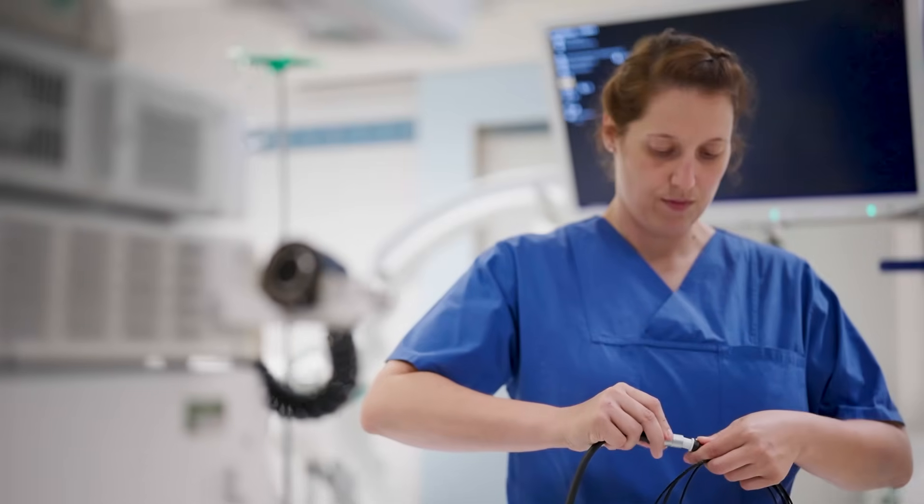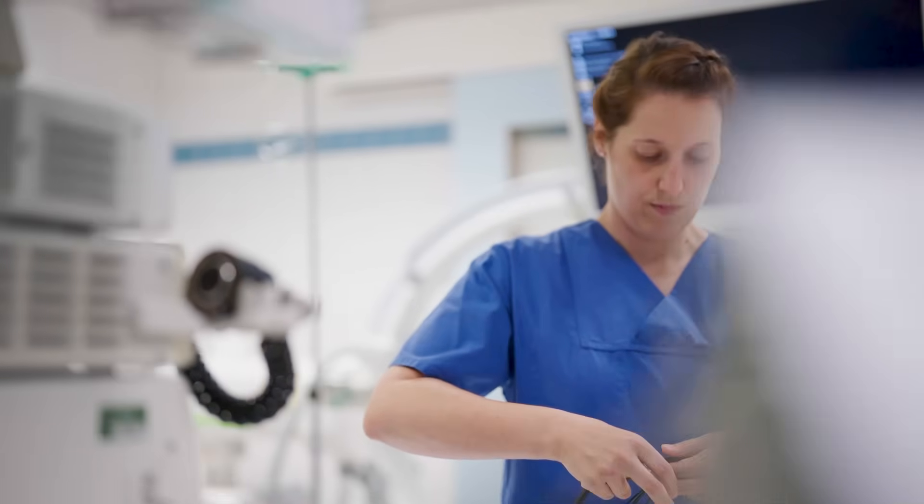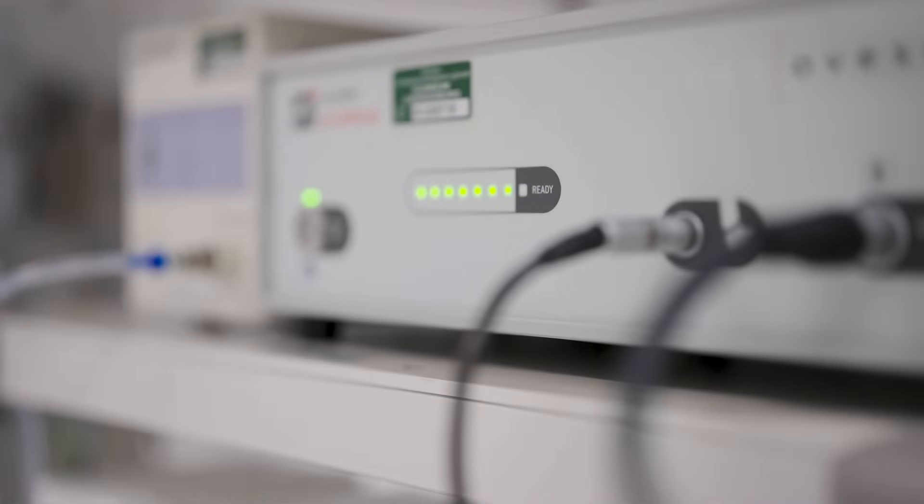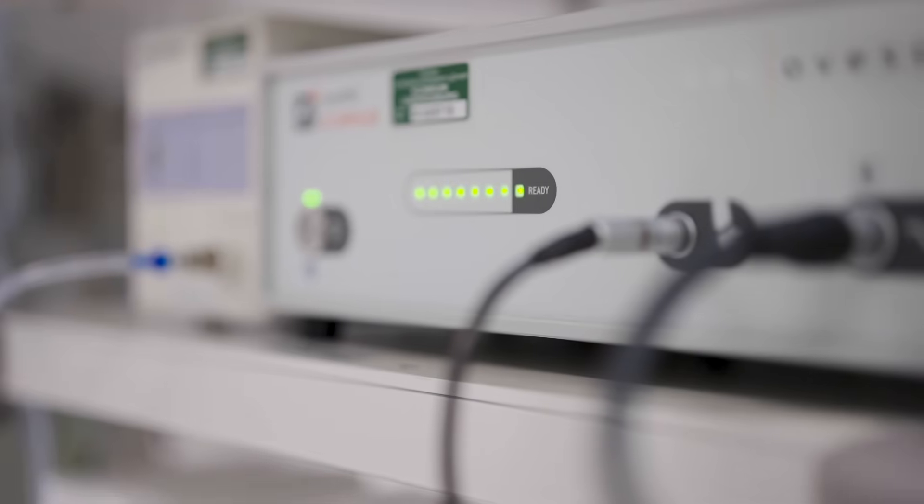So that the Remove System can continue to offer a safe and efficient solution for endoscopic clip removal and support excellence in patient care.